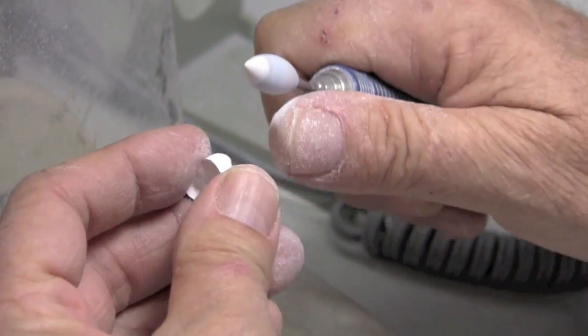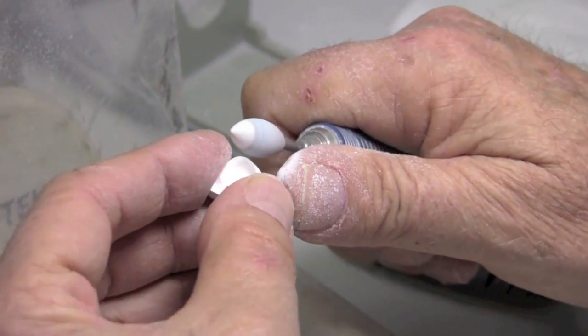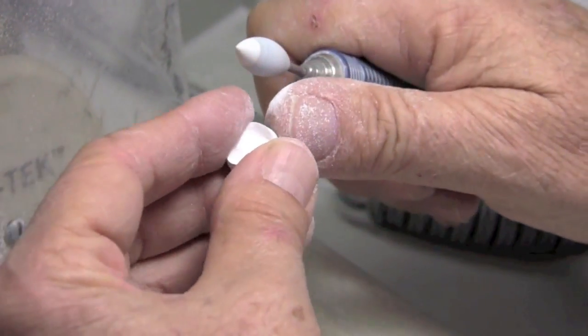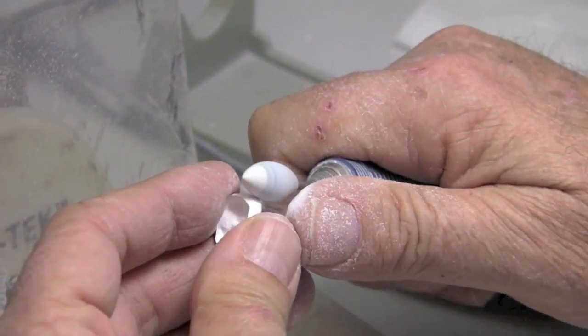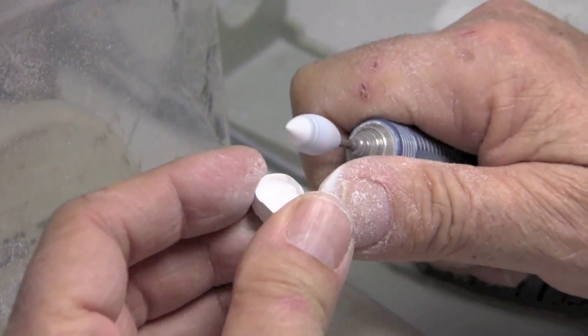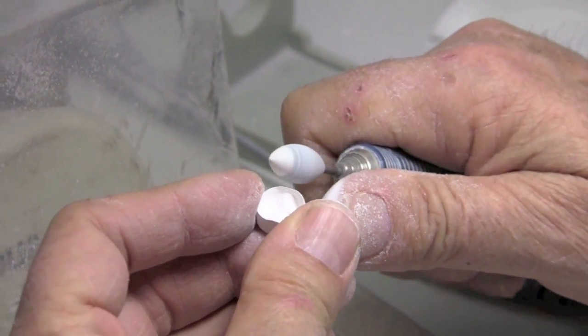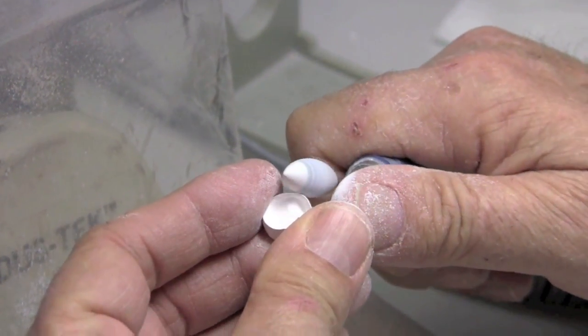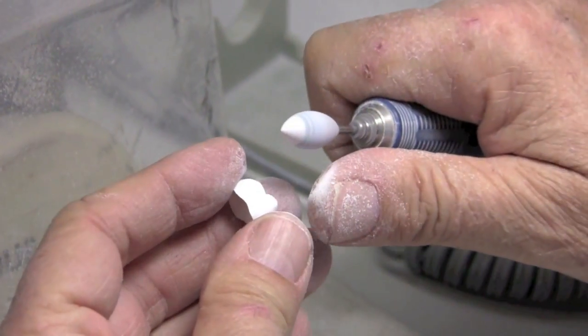And just cause again, we do not want to touch the zirconia in the post-sintered state. It's too susceptible to damage. And it takes too long to thin margins down. And I think, but mainly though, the heating of the zirconia, especially if you spark it, the grinding of it. When you do that, all bets are off in terms of what kind of strength is left of your zirconia. And that's it on the margins.